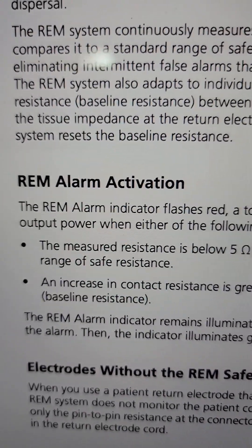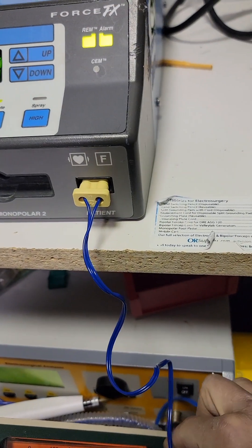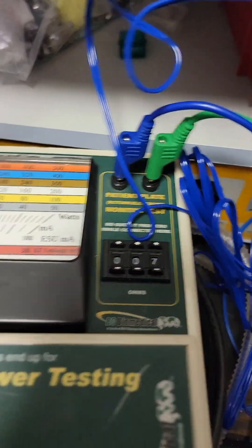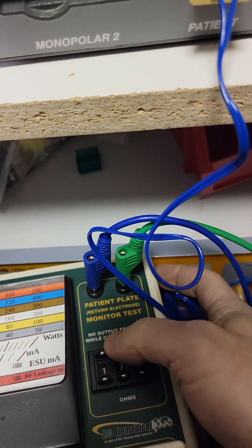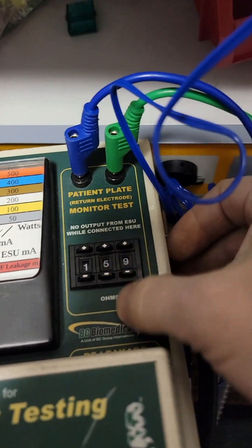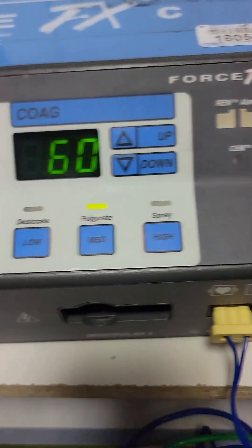So 2 ohms above 5 is more than a 40% increase. To reset this, all you do is pull the lead out and plug it back in. As long as you're within 5 to 135 ohms, that reset is good — that's how it re-learns the baseline. Let's go to 79 ohms — we're within range but we're red. Pull one lead out, plug it back in — now green. At 179 — pull it out, plug it in — still red because we're outside the range. Go back down. Let's do 136 — still red. Go down one to 135.